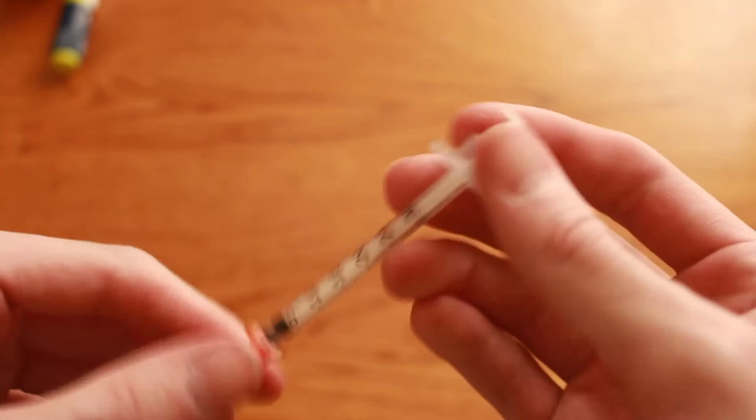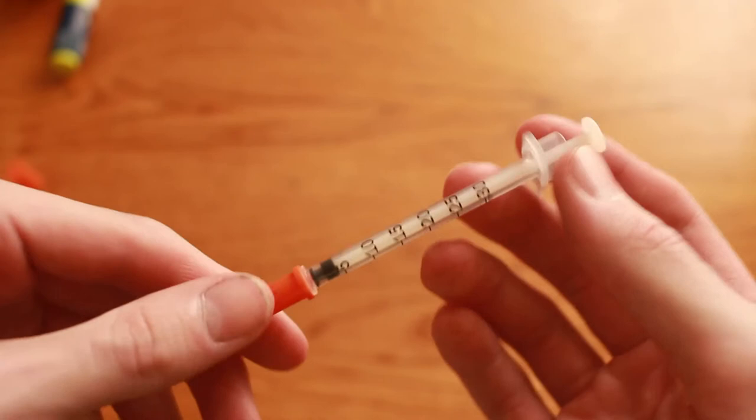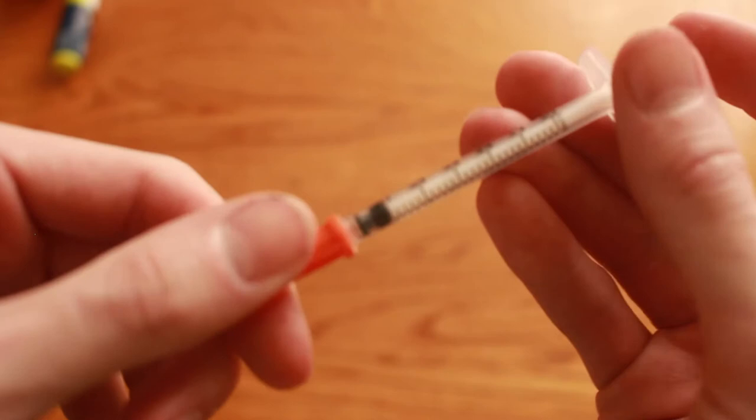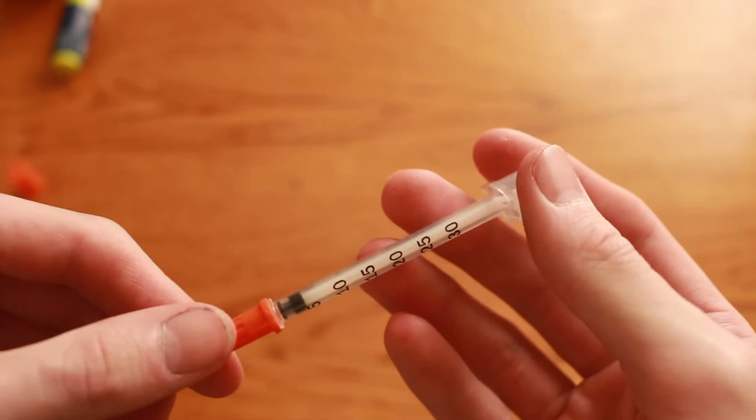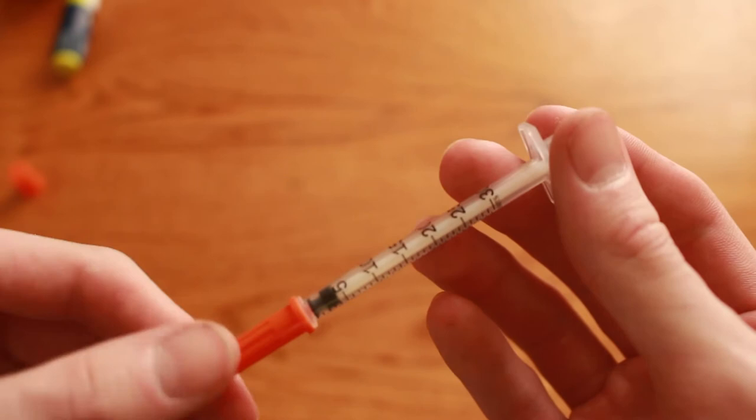So this is a syringe right here and the problem with using syringes for corrections, for example if you're like me, is that you might need just one unit or just a half a unit. And if you don't reuse syringes like I try not to because it is risky to reuse syringes, it might cloud up your insulin.